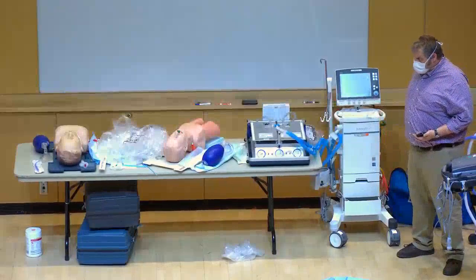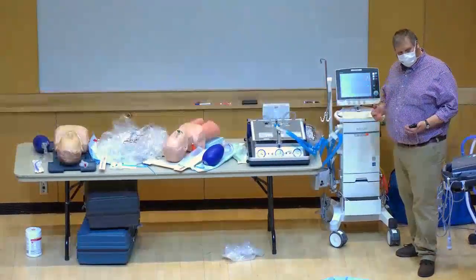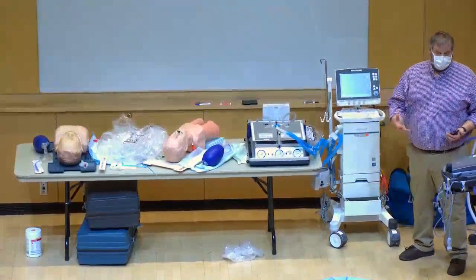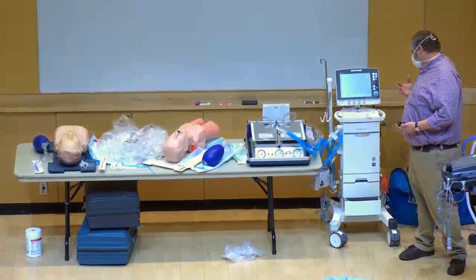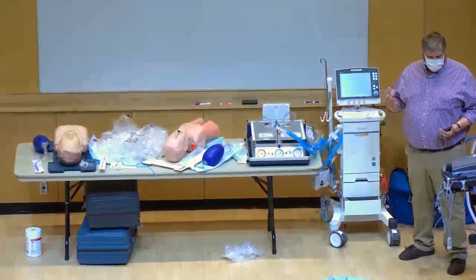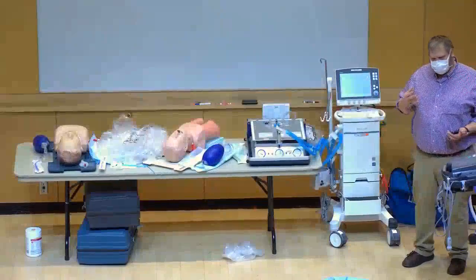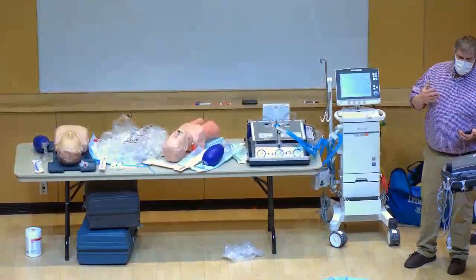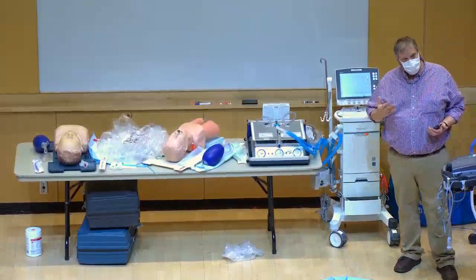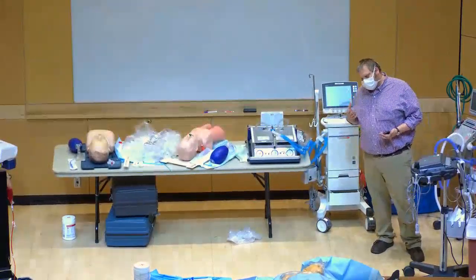From 8 mL/kg you can titrate up or down as needed. Set rate at 12 to 16 breaths per minute. In acute situations start at 100% FiO2. Start at 5 cmH2O PEEP; if saturation isn't improving on 100% FiO2 and 5 PEEP, increase the PEEP. If you suspect ARDS based on x-ray, blood gas, and history, don't leave the patient on 100% and 5 PEEP — go up on PEEP using the ARDSNet PEEP table.